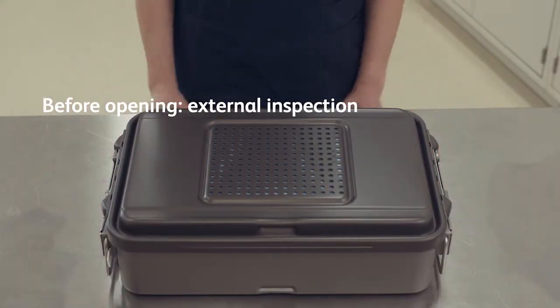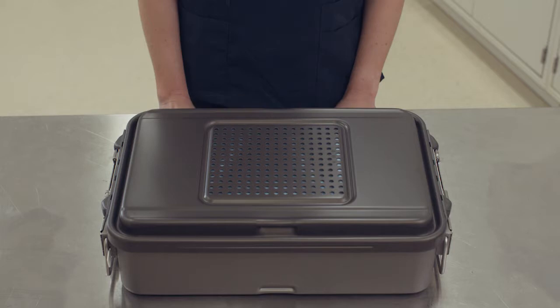After sterilization and storage but prior to use, inspect the container. Place the container on a level surface that facilitates aseptic opening.